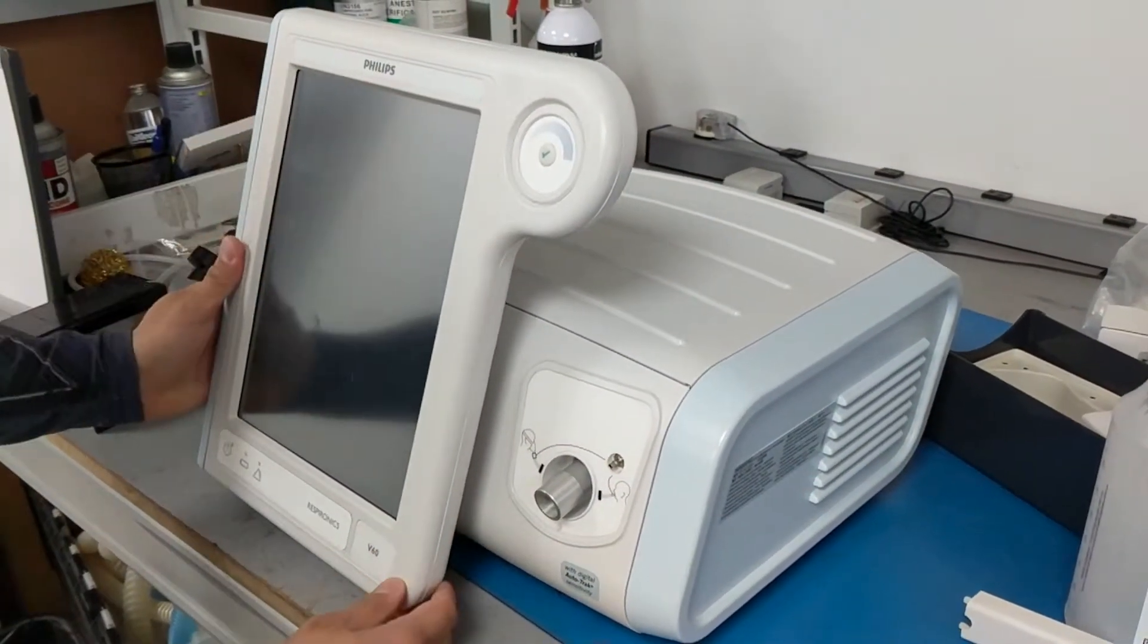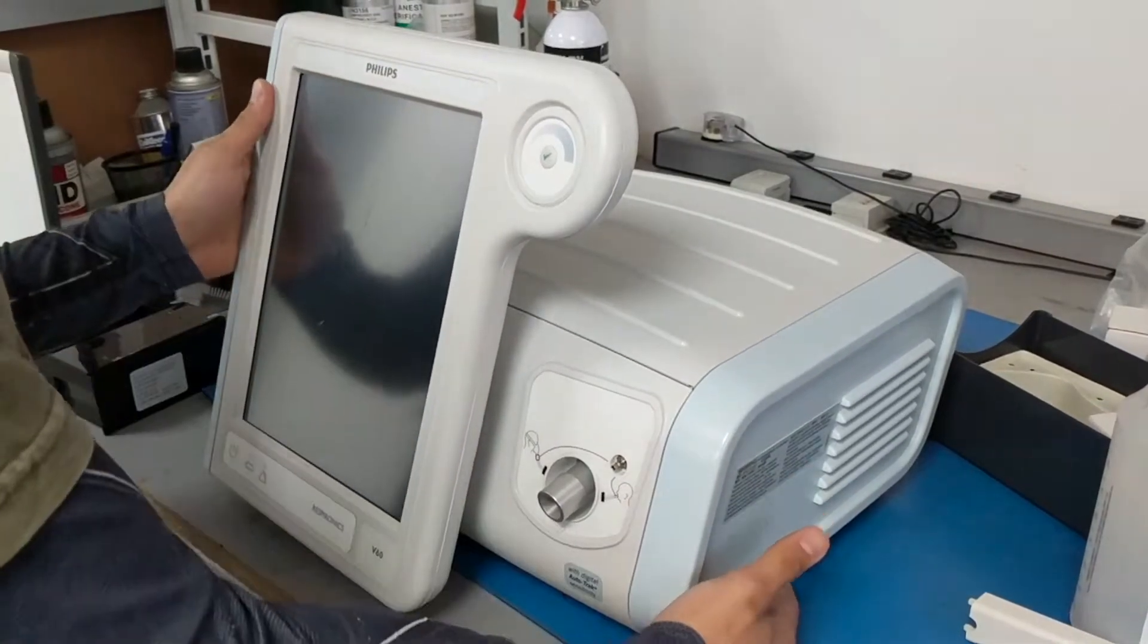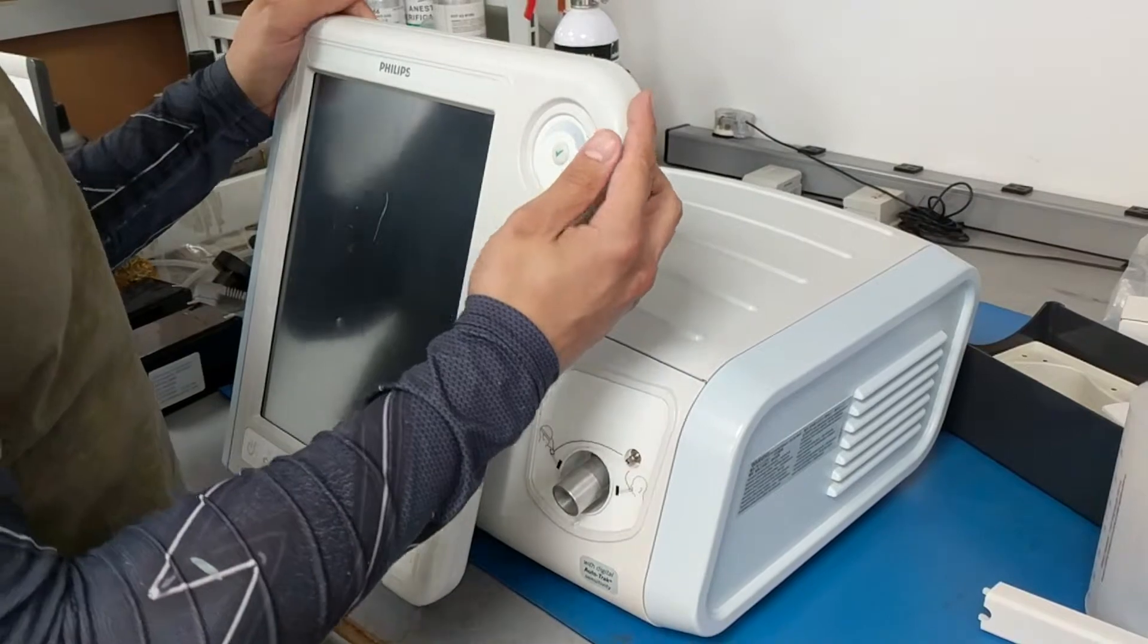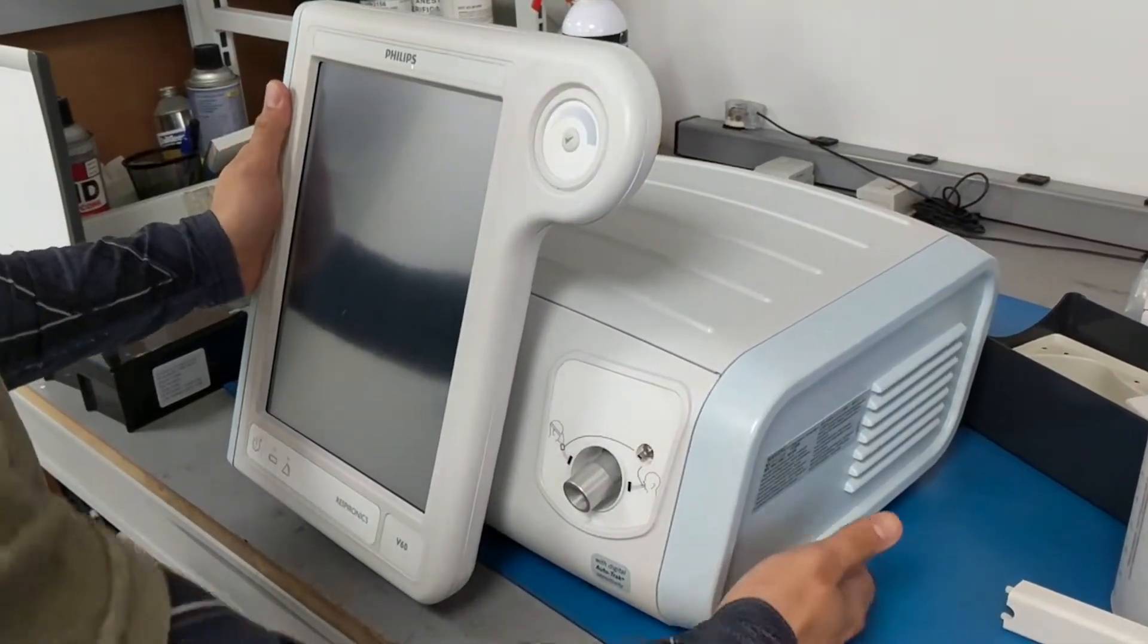Hello, this is the Philips V60. Quick overview, this is going to go over just how to mount the unit onto the cart, if that is your preference.